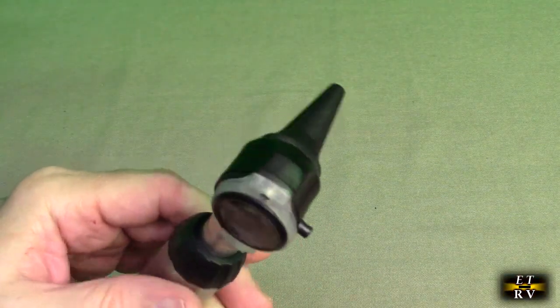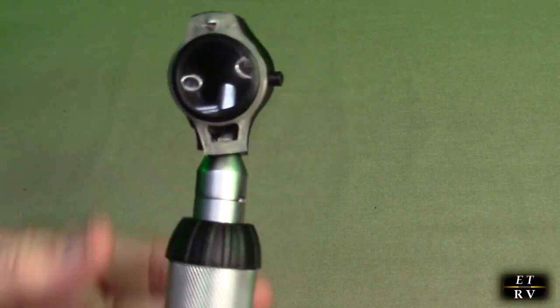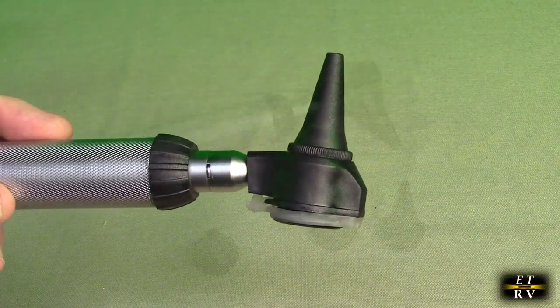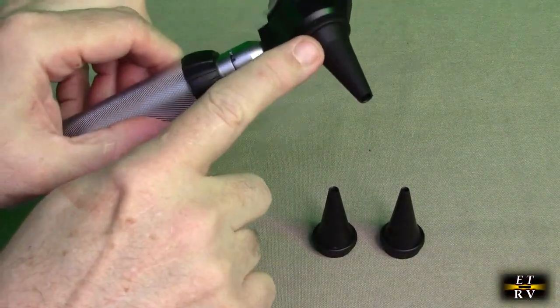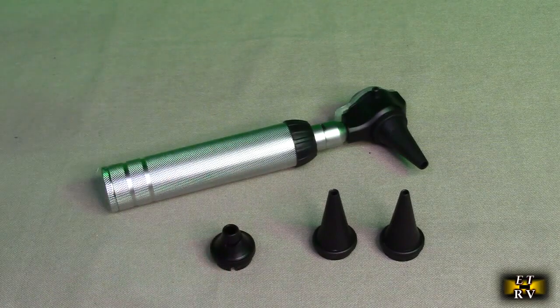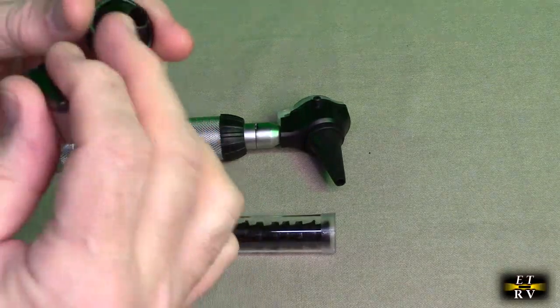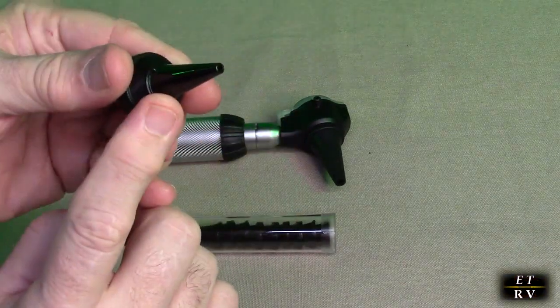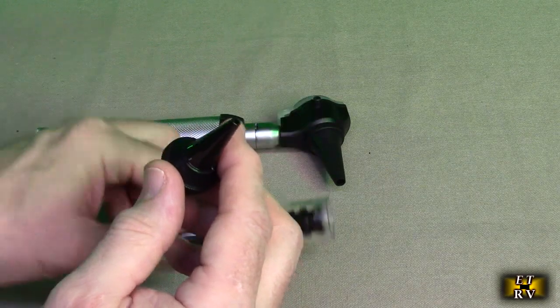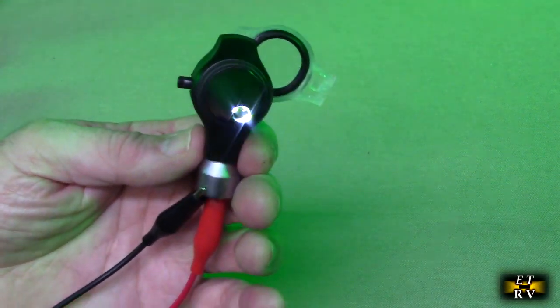This is great for looking into the ears and even the mouth — there is magnification in there. Very handy to inspect somebody's ears or throat. The unit comes with two additional inspection caps and a different style cap that fits the unit. The additional piece that fits on the otoscope has a slot for smaller end pieces, and it comes with a container full of them. You can clean them with alcohol and reuse them.